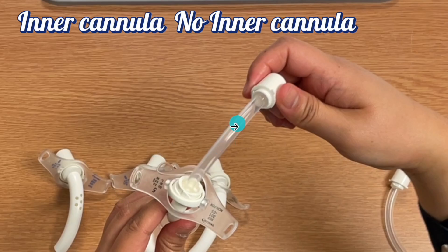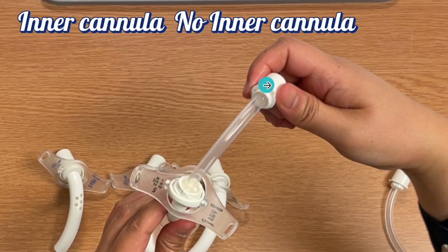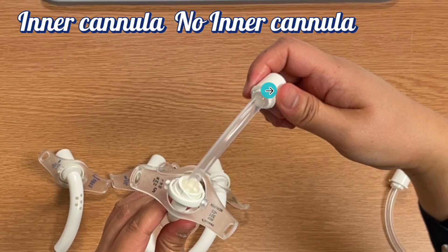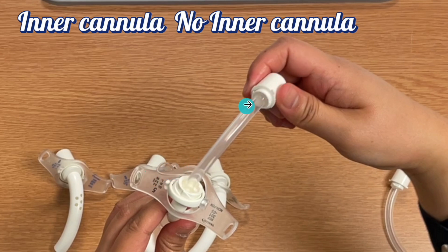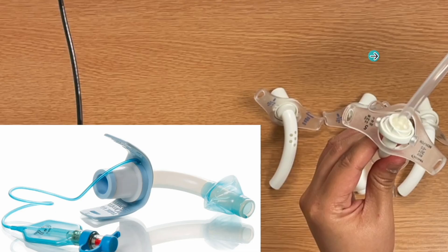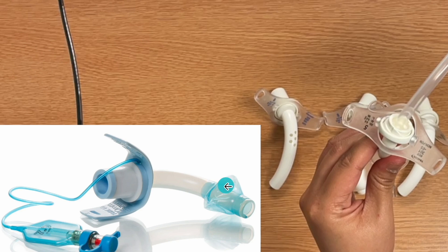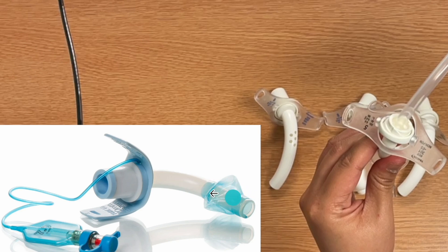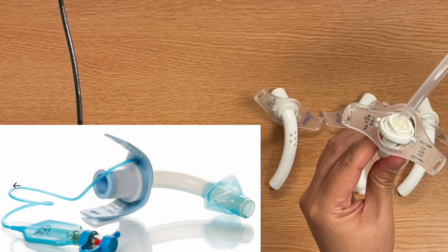Some tracheostomies have an inner cannula, which connects directly to the mechanical ventilator or ambu bag. You can remove the inner cannula, clean it, and return it. Some tracheostomies have no inner cannula — the tube connects immediately to the mechanical ventilator with nothing inside.